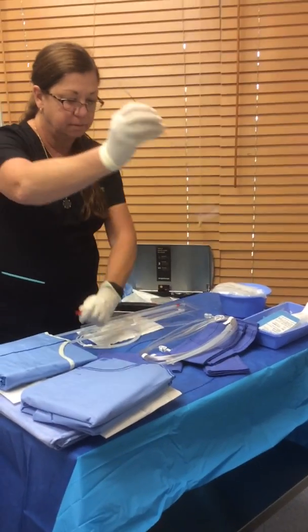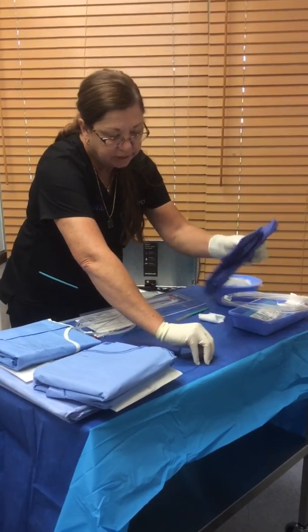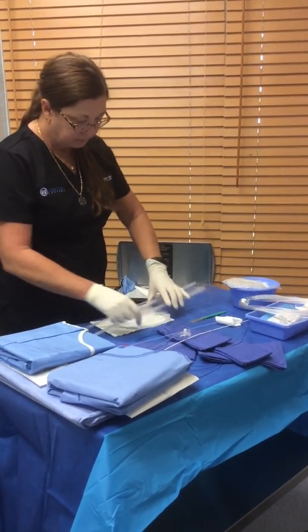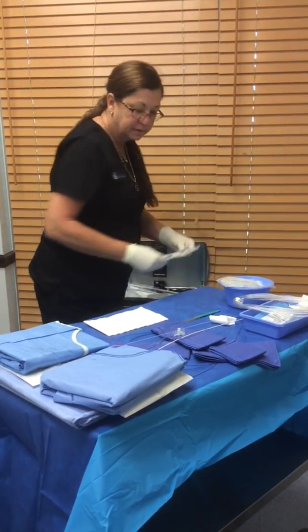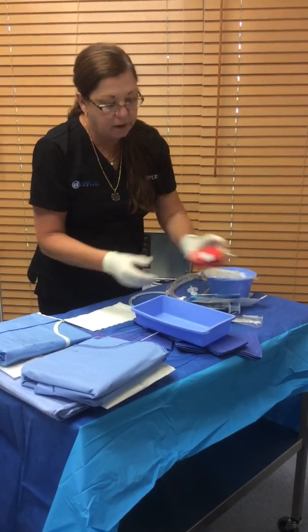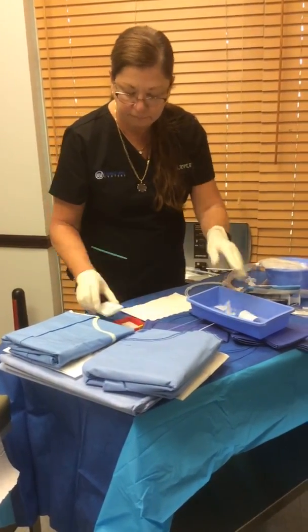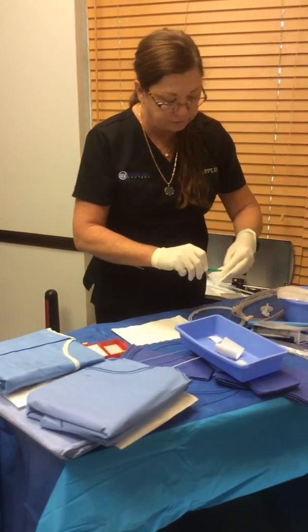I'm going to take this out and just lay it here for now so I can get my sheath flushed. Finish unpacking this — there's my dilator. I'm just going to start putting things where they belong. I always start with the needle case, and then just as I pick things up, I put them where they're supposed to be.